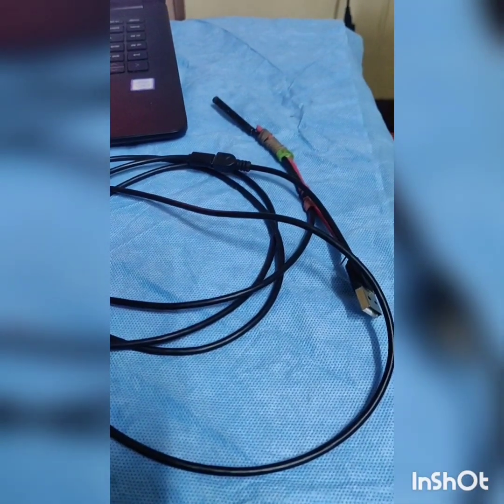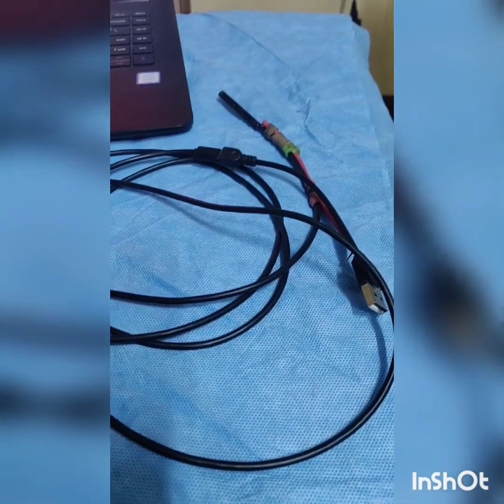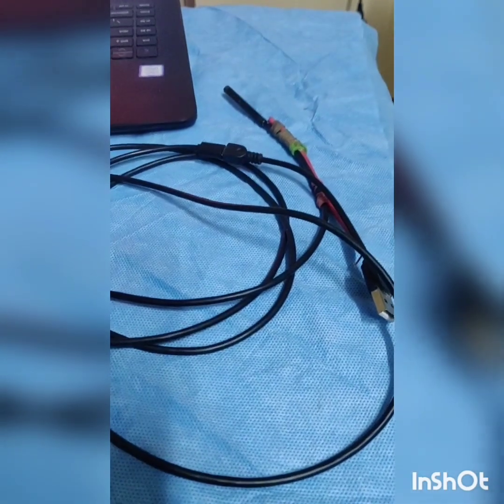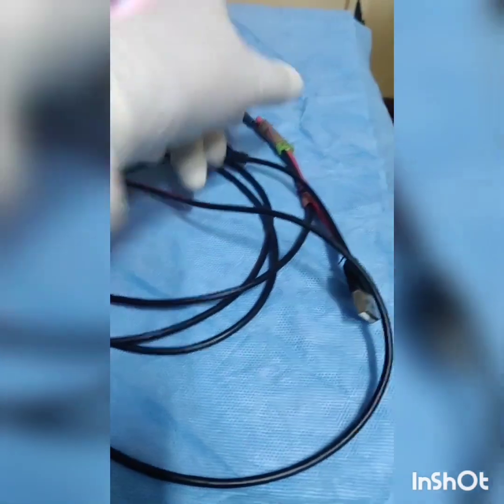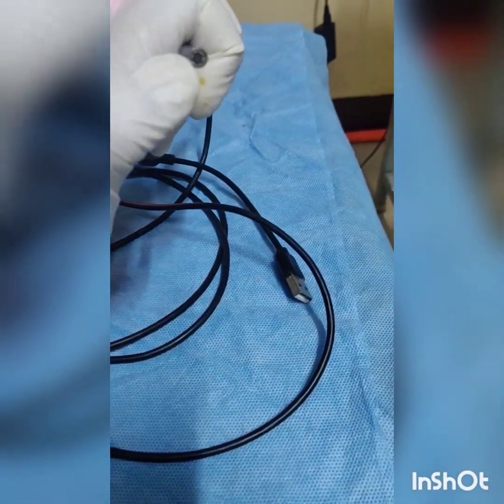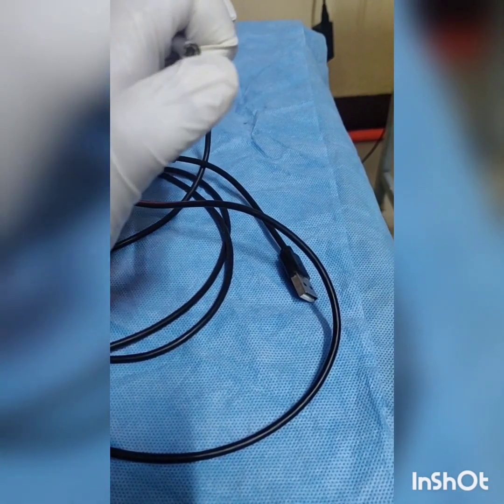We have a long slender web camera which I have ordered through Amazon. I will send you a link so that you too can buy this web camera. It basically acts like a zero degree arthroscope — it has a central camera with a surrounding illuminating light source.